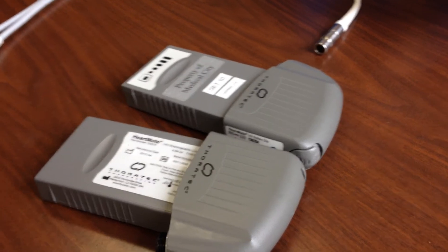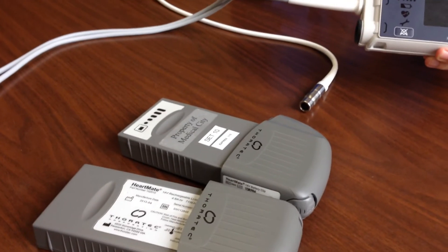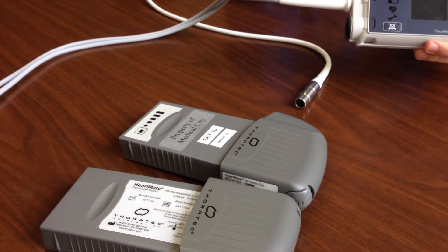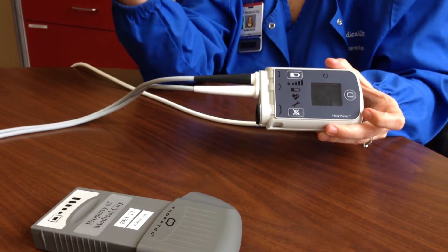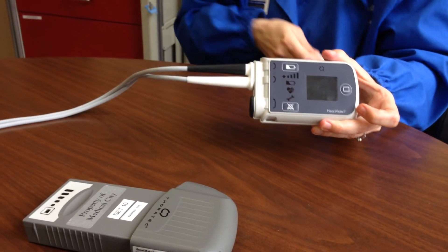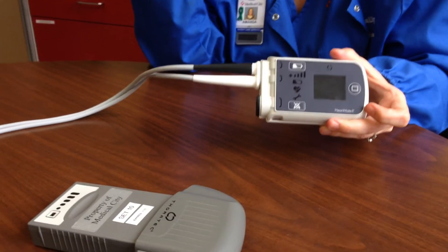When you visit the patient, what we've done in the past is record the numbers on the machine. As they start to fall, the patient is starting to decline — especially the PI. The PI is essentially their blood pressure. The PI and the flow, which is the actual liters per minute of blood flow, will start to fall as the heart starts to fail.